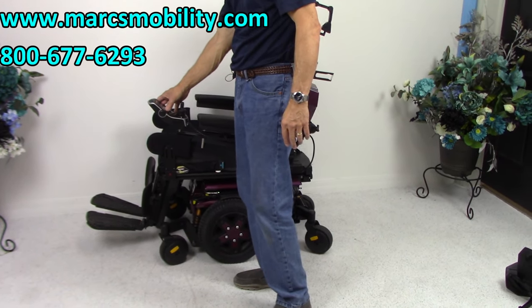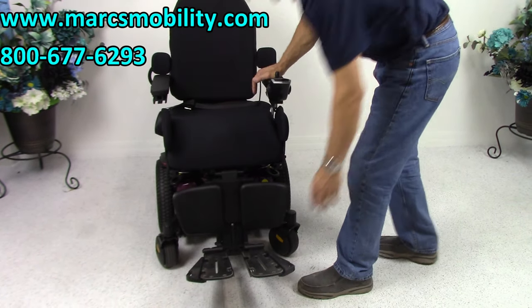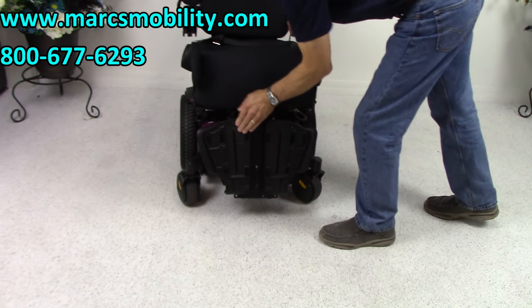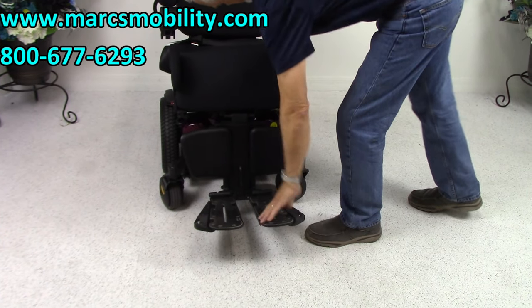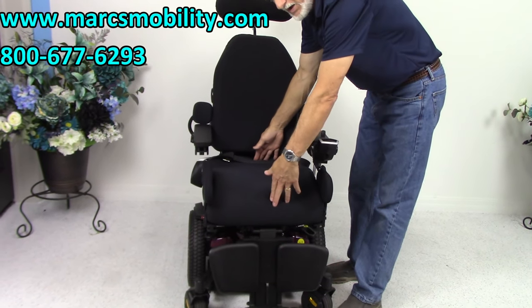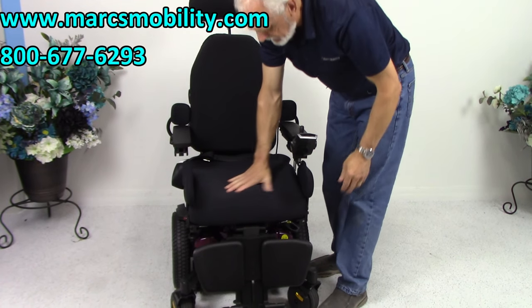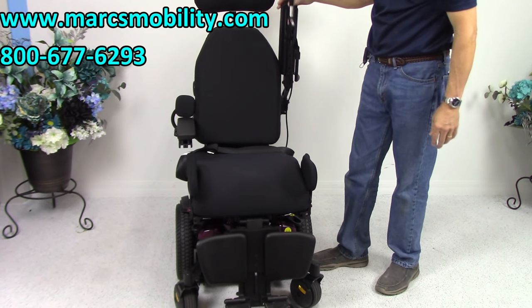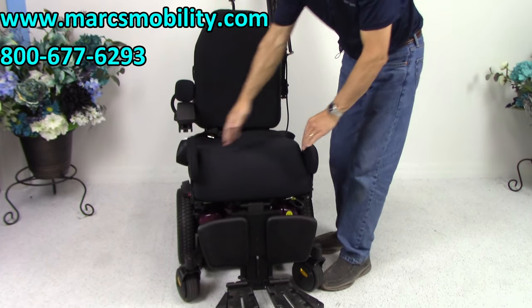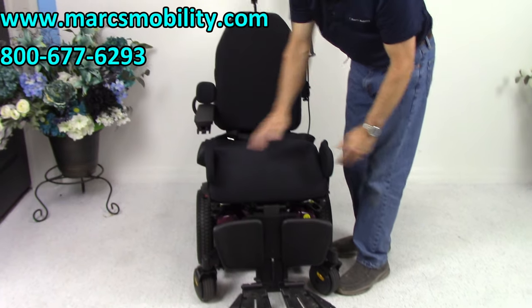I'm going to put the chair back into drive. These foot plates do flip up, so when you exit the chair there's nothing in front of you. The seat on this chair is 18 by 20 inches — a very comfortable seat. The arms flip up as well. You have lateral pads which keep your knees from falling together and keep your feet from coming off the foot plate.